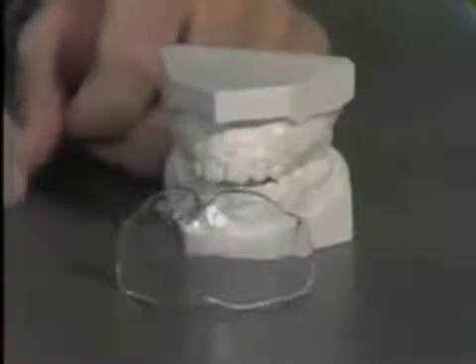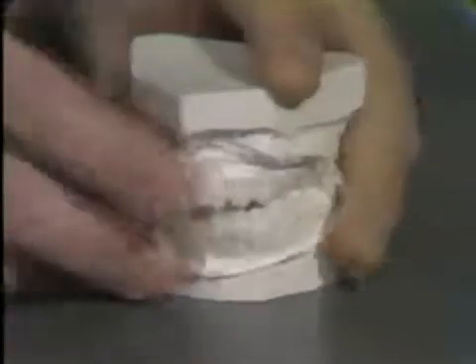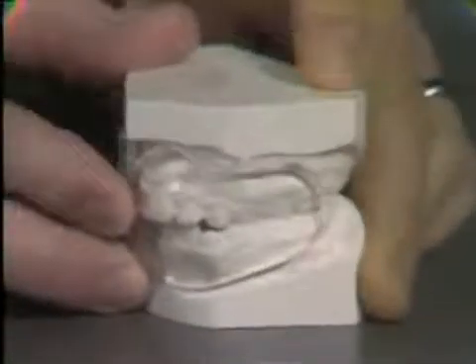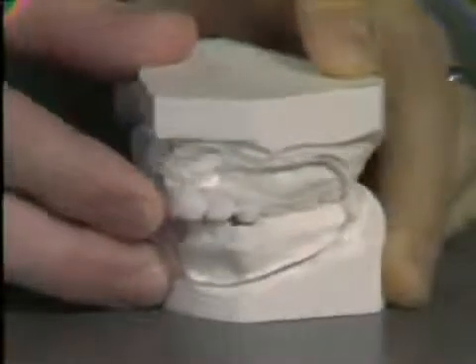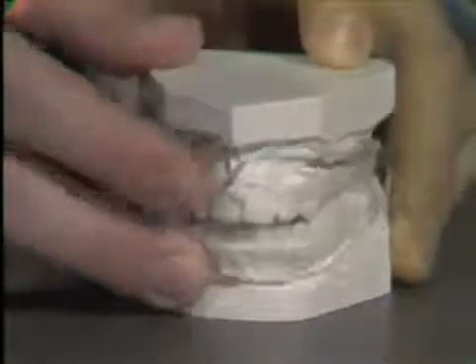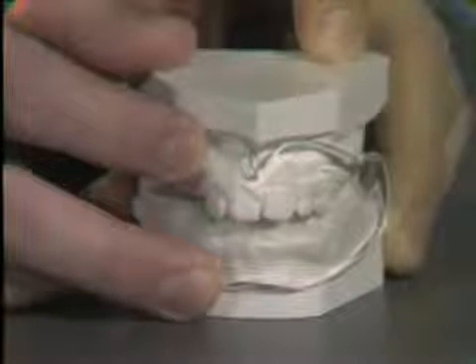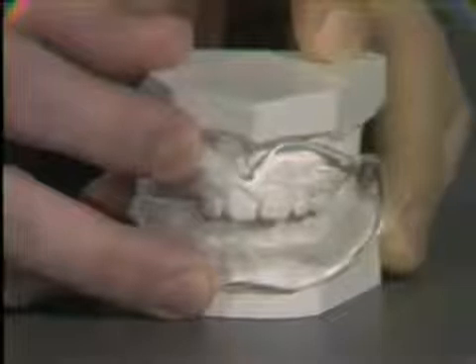This is an oral shield. It is a piece of plexiglass that is formed and shaped to fill the vestibule of a patient's mouth. As it fits in the mouth, the oral shield extends to the distal of the first permanent molar on one side, around to the distal of the first permanent molar on the other side. It extends to the greatest depth of the labial vestibule, superiorly and inferiorly, to the full extent that the stretch of the cheek and lip tissues will comfortably allow.